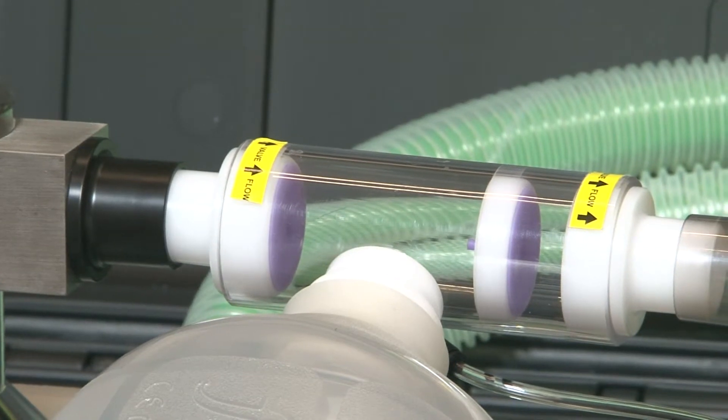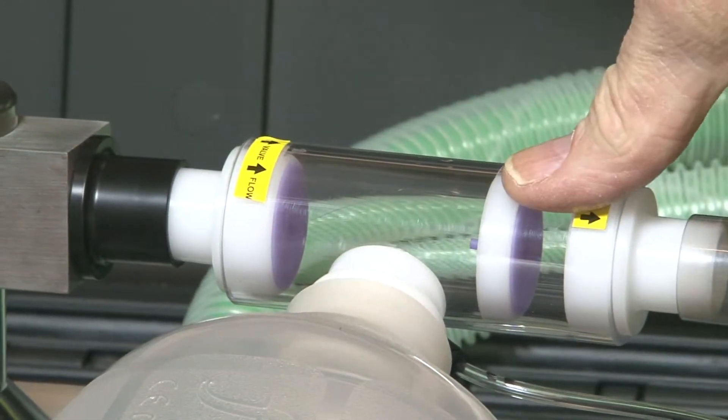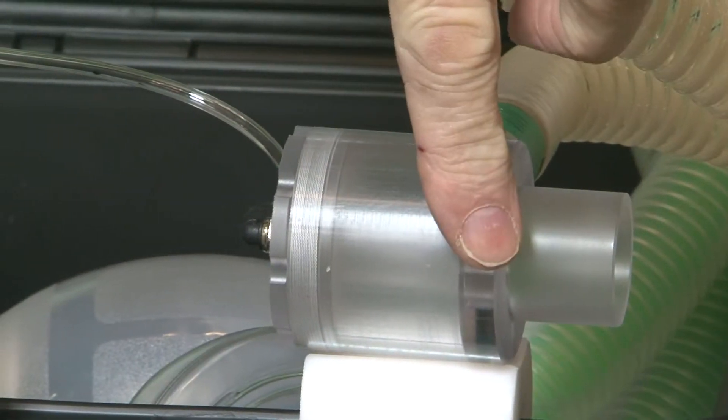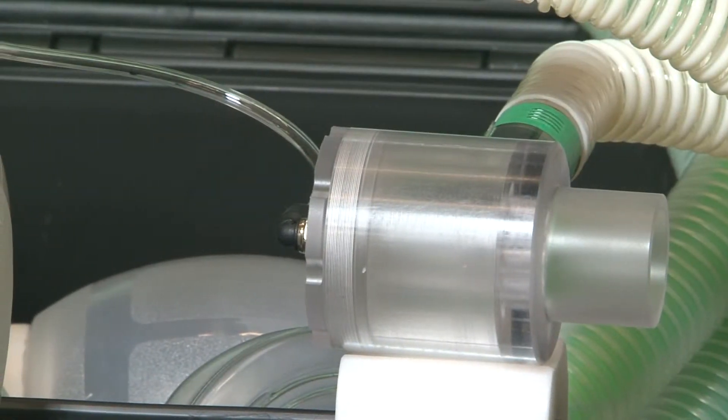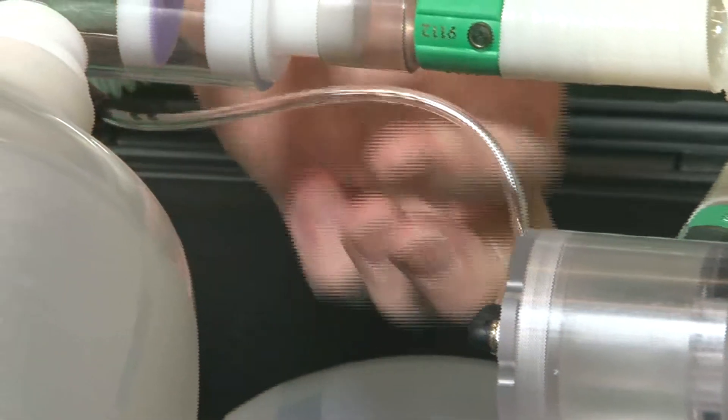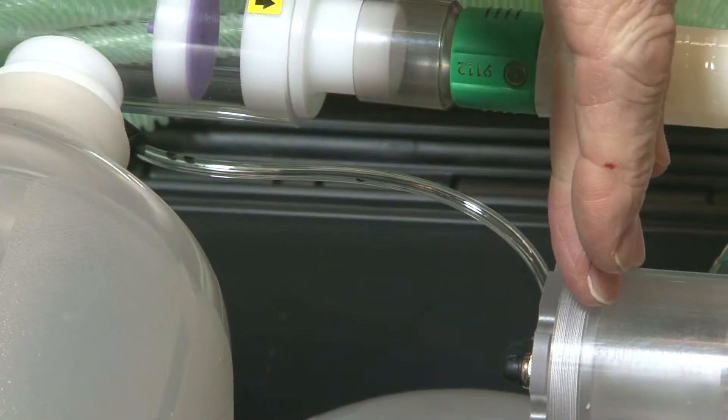The patient's circuit valve is a linked system with an inspiratory side and an expiratory side. The two sides are linked by the stabilizing tube to close the expiratory side during manual ventilation.